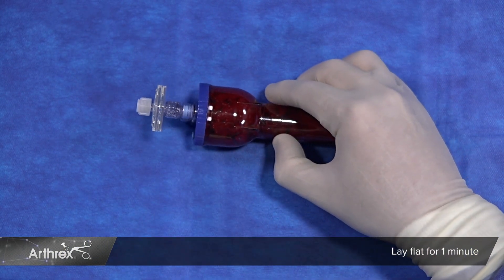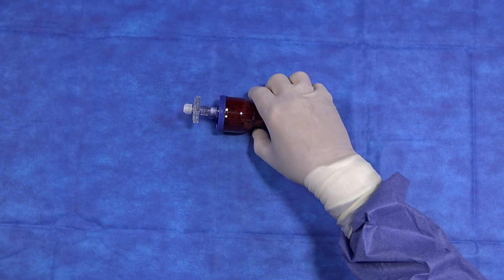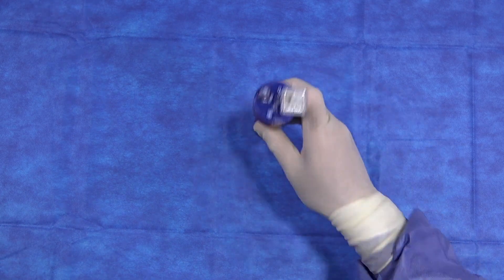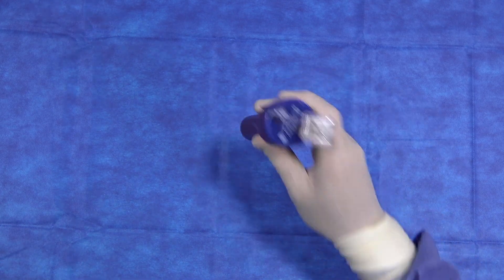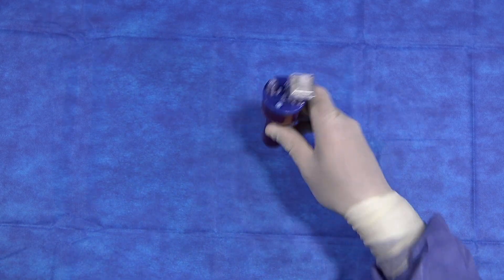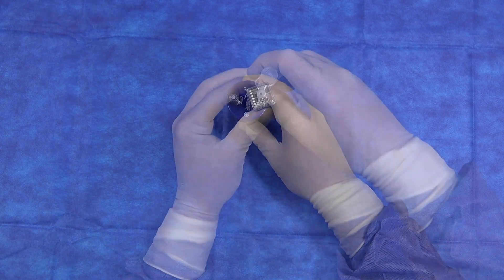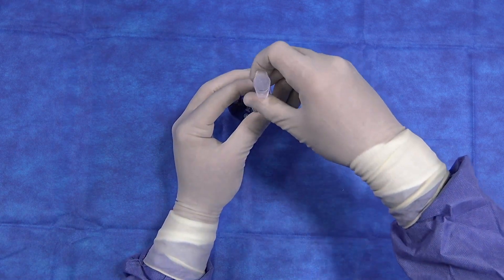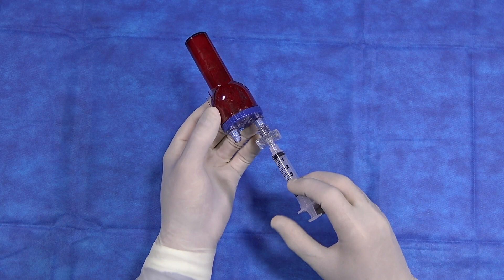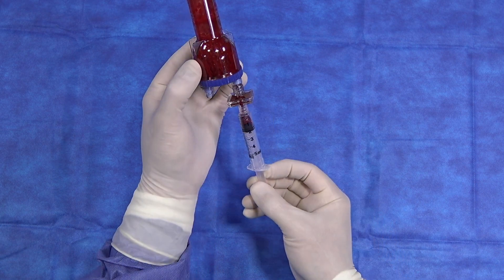After 1 minute, you will shake again vigorously for 5 seconds to break the clot up, invert, and withdraw your serum. Remove the cap from the filter, attach your syringe, invert, and withdraw your serum.